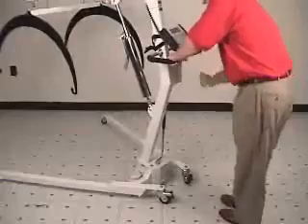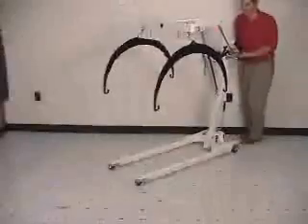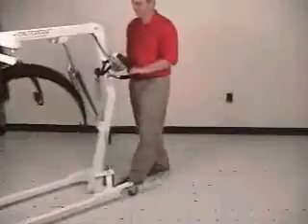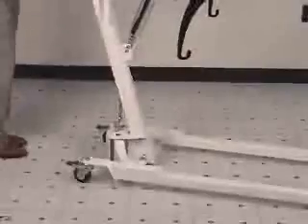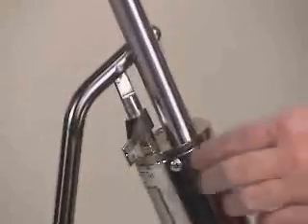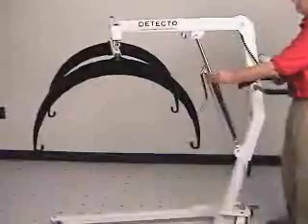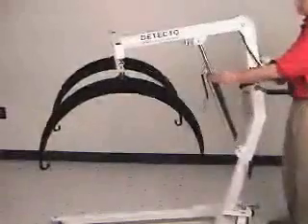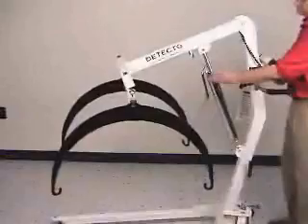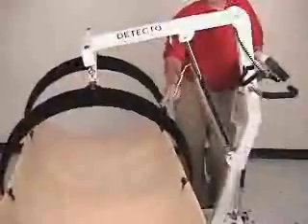After weighing, to close the legs in preparation for transport of the scale, twist the cam handle in the opposite direction. Please note that a patient should never be transported on this scale. When putting the scale in position to weigh a patient — after the legs are spread, stable, and the wheels locked — lower the stretcher hoops by turning the hydraulic switch counter-clockwise to open the valve. Gently drop the hoops near the bed so the stretcher, which will be under the patient, can be easily attached. To stop lowering, move the hydraulic switch clockwise to close the valve.